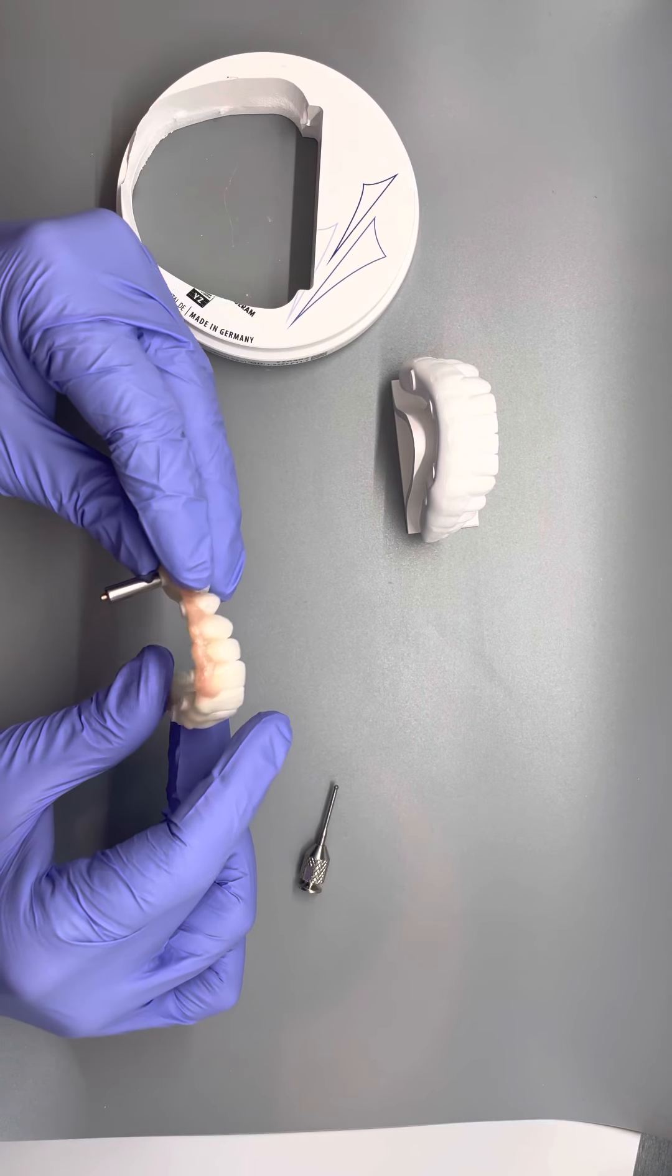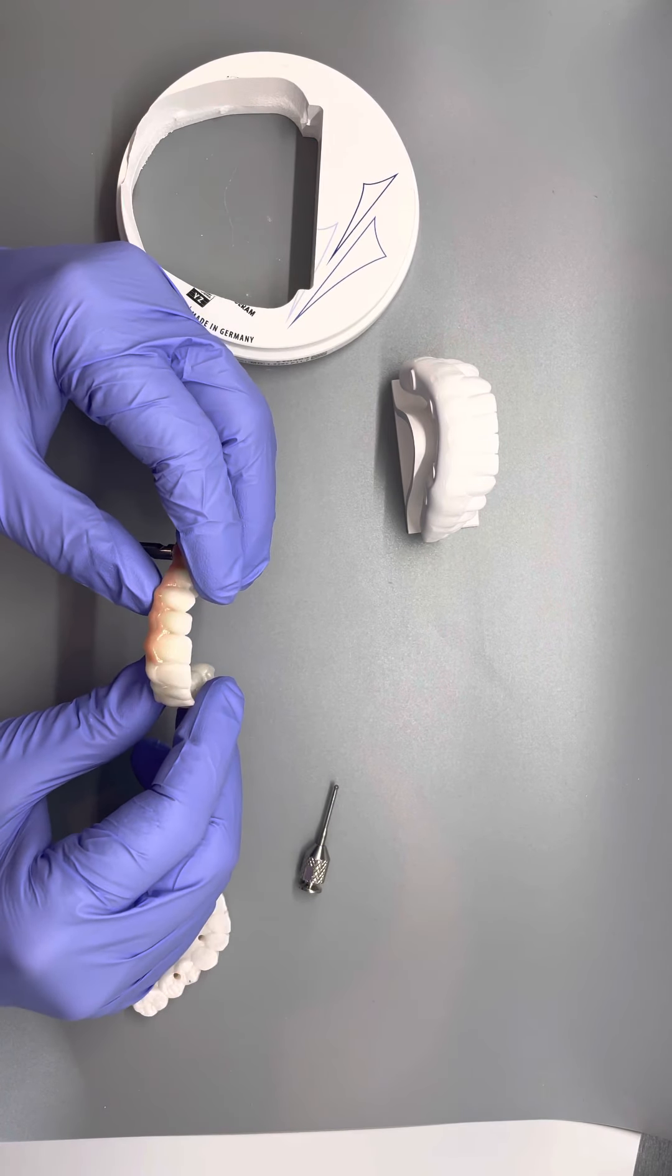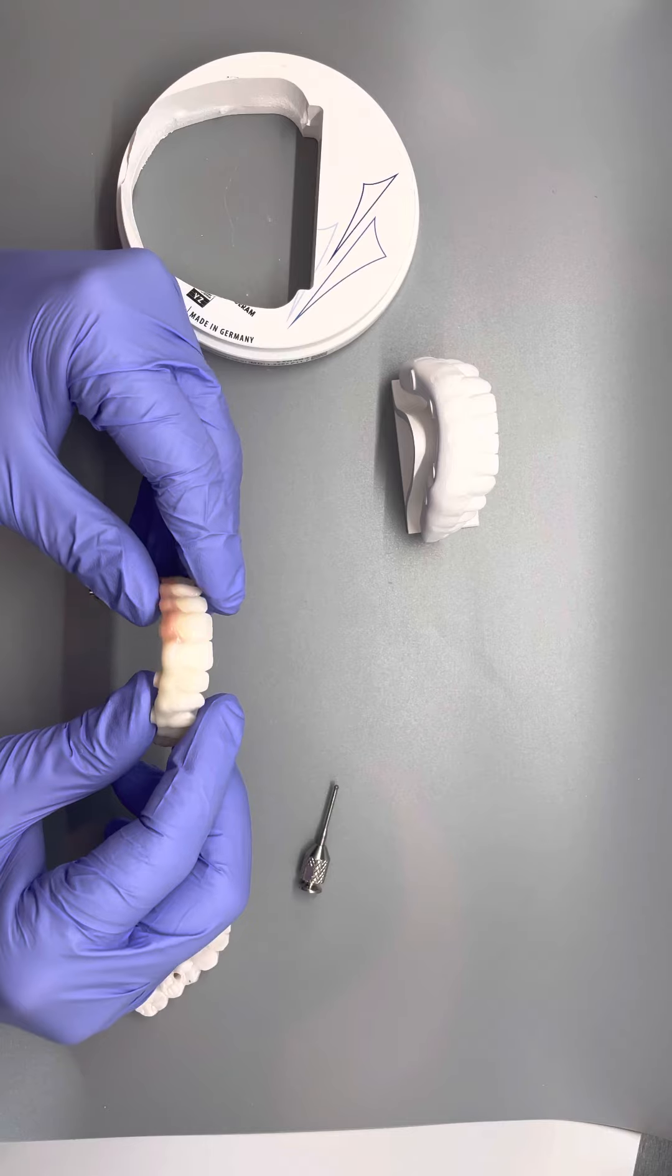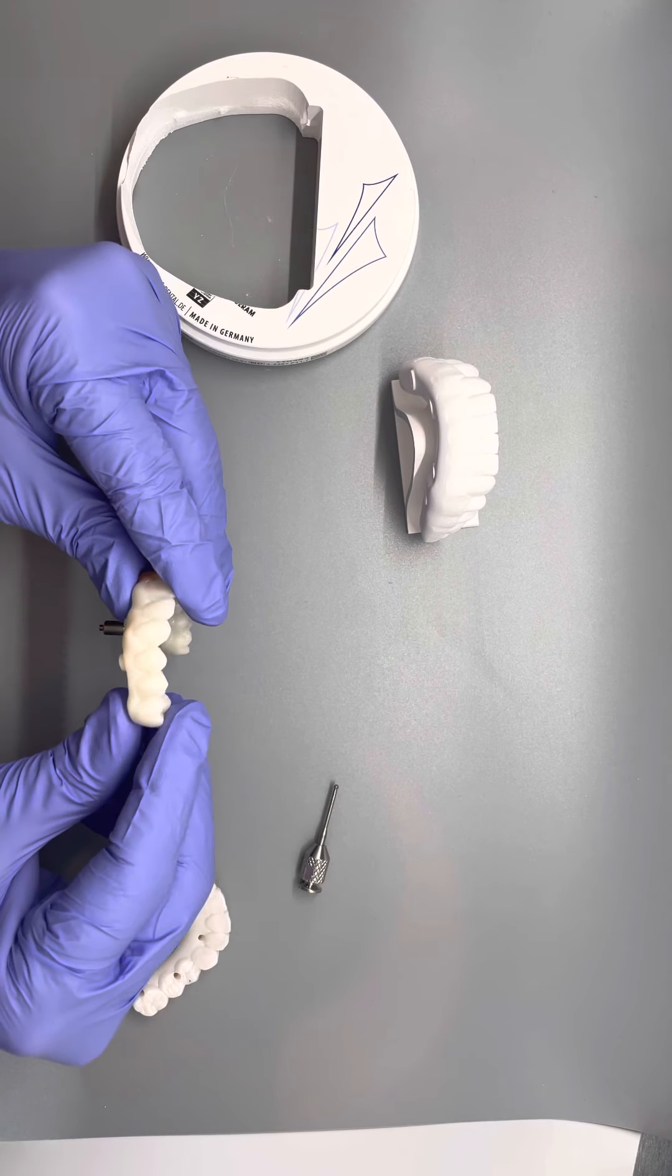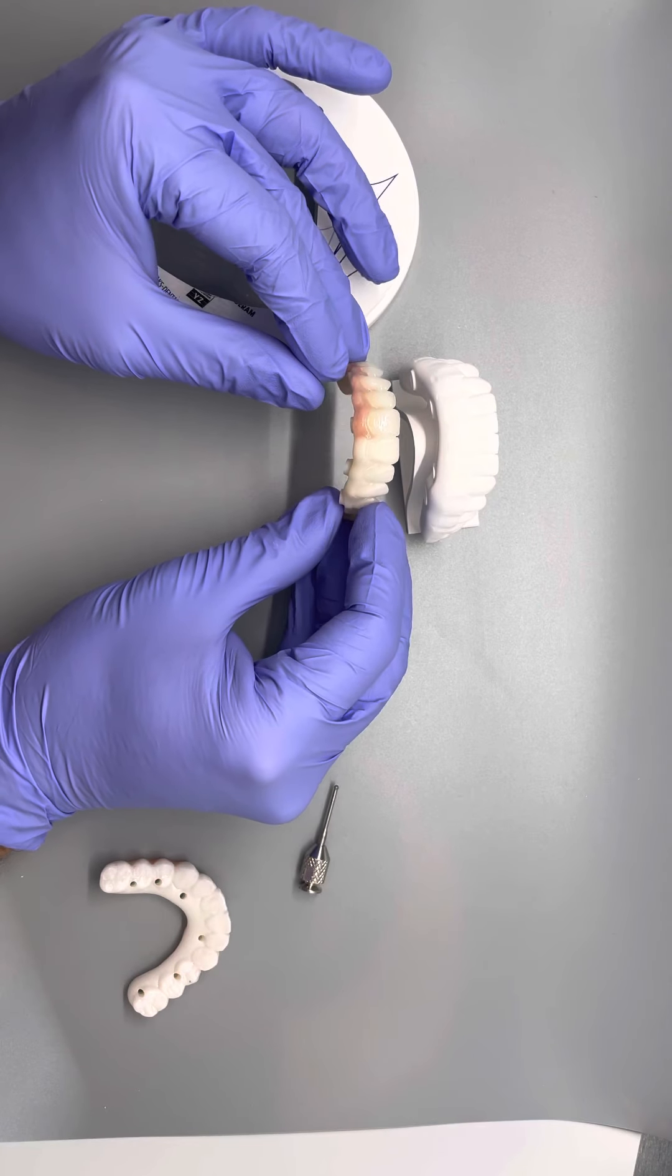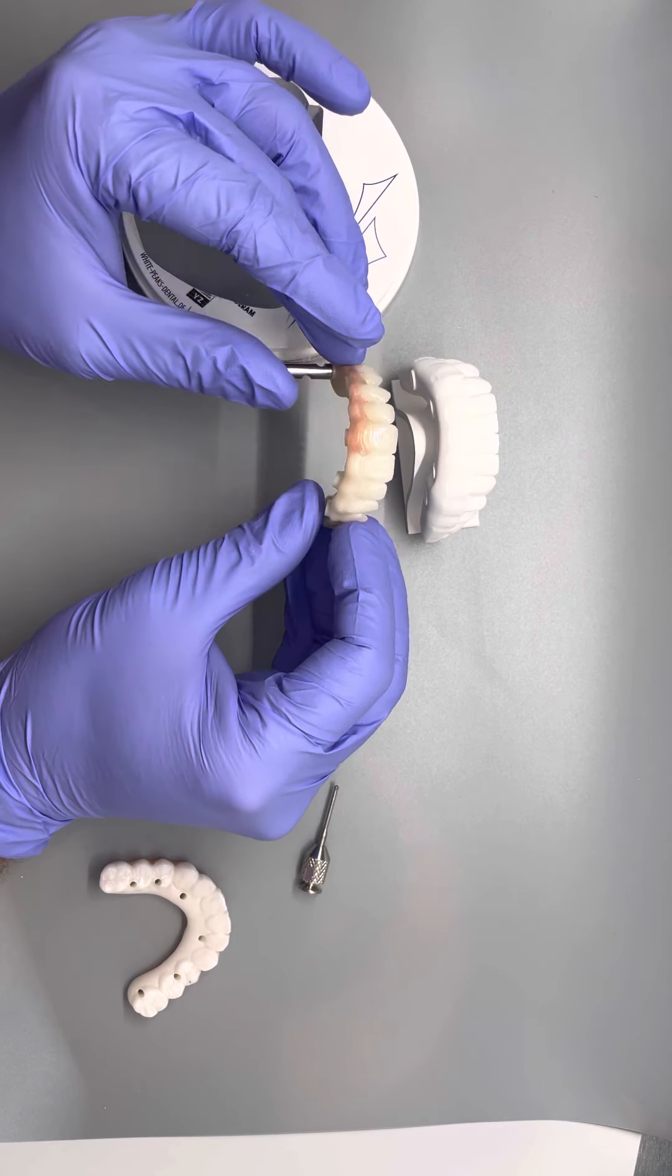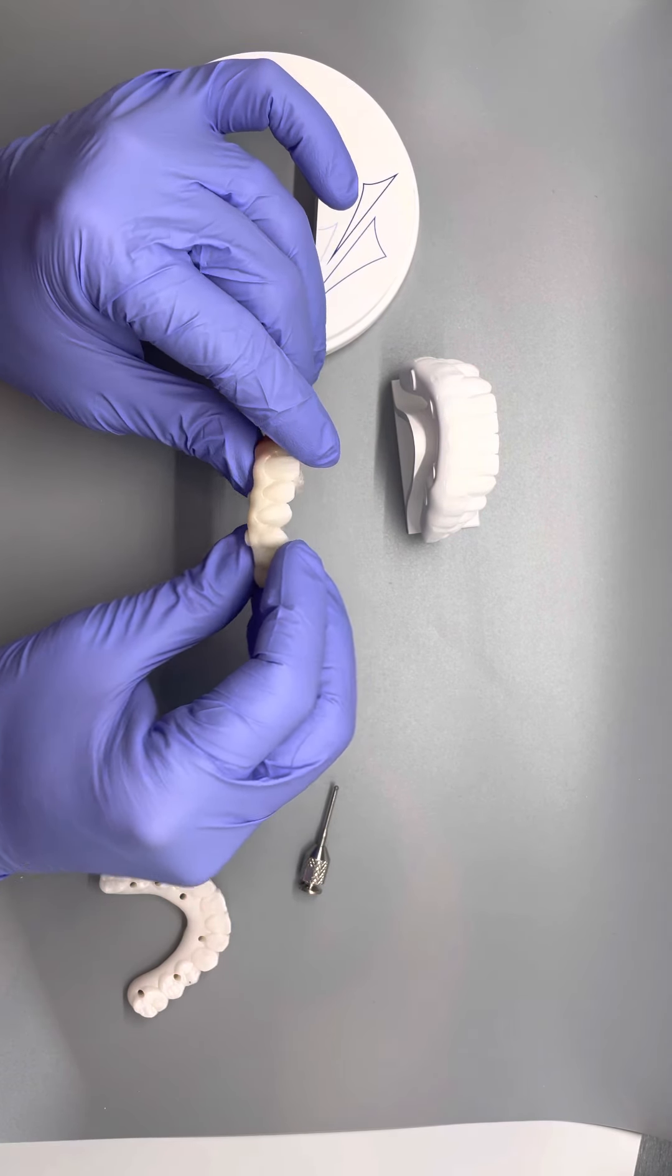So this is just a little demo that we have to show how we customize the gum tissue here. And so we've done one side and we left the other side bare. So you can see it shrinks pretty significantly. These are not the same patient, but it does shrink significantly and it changes colors.